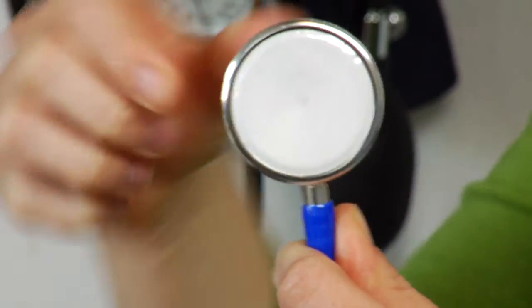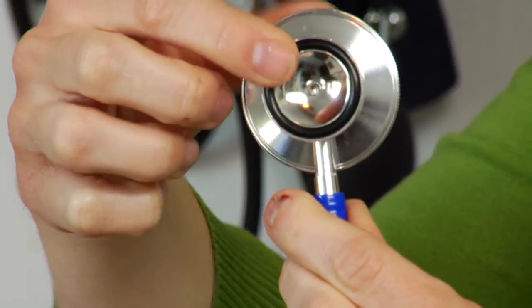Another thing to consider is I have two different kinds of stethoscopes here. This one is a cheaper version. So we use these a lot of times in isolation because they can be thrown away. So you want to think, how much can I spend?